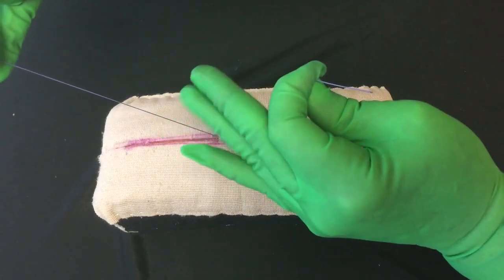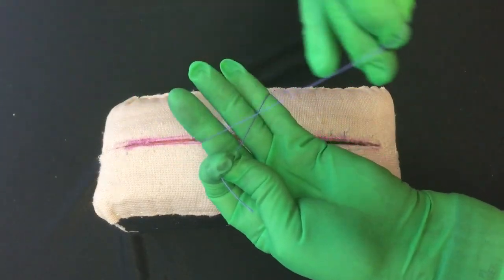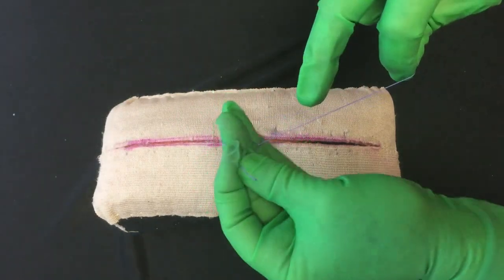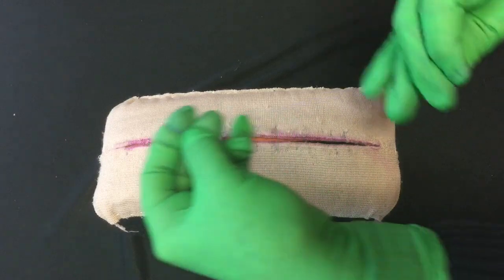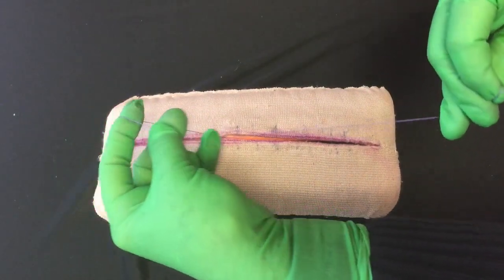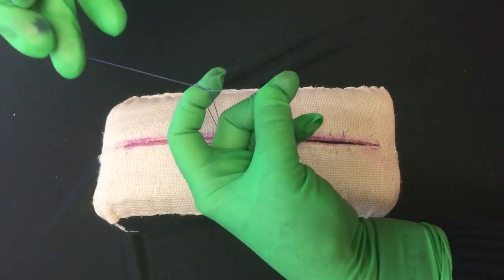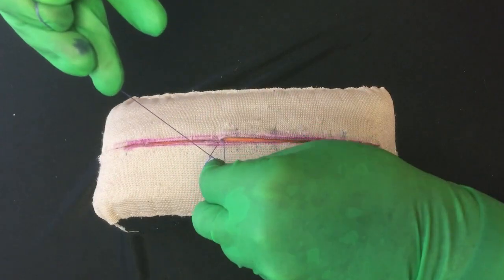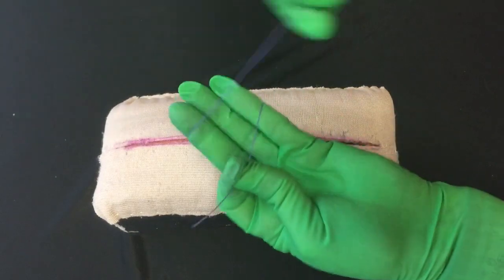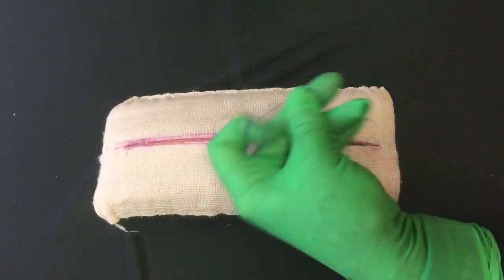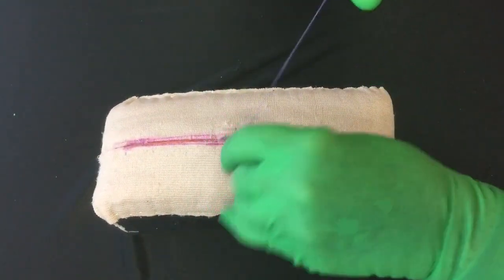Now what that's done, I'm back to my first one. So turn my palm, get the X, go under, catch it, pull it, dive under with the index finger. Pull it tight over the index finger with the X, go next to my fingers holding the suture, dive over with the three. So eventually you'll be doing this and you can see how that works.